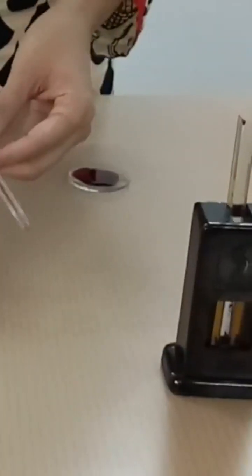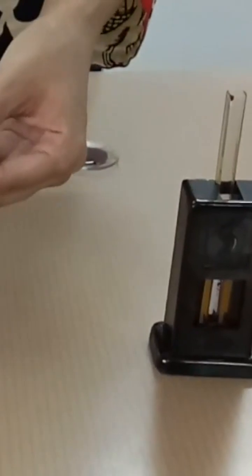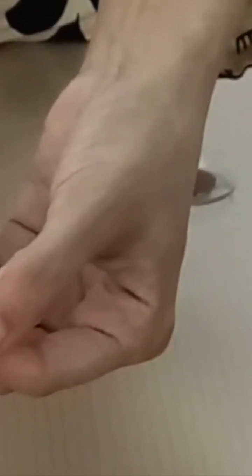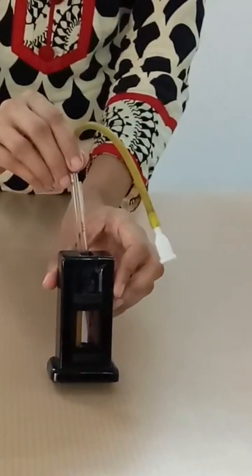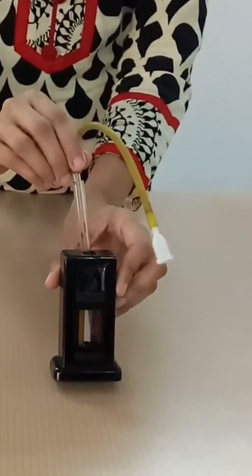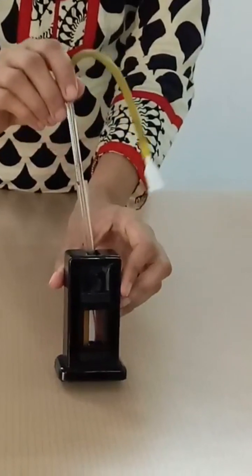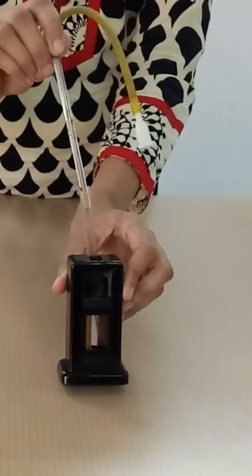Draw the blood up to 20 microlitre in hemoglobin pipette. Immediately immerse the tip of the pipette in the square tube and expel the blood gently. Withdraw the pipette from the tube touching it to the side of the tube, ensuring that no mixture is carried out of the tube.